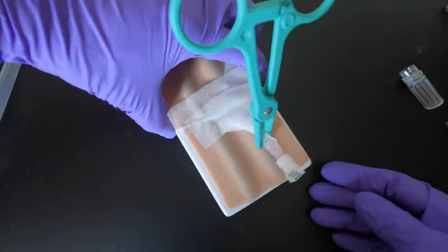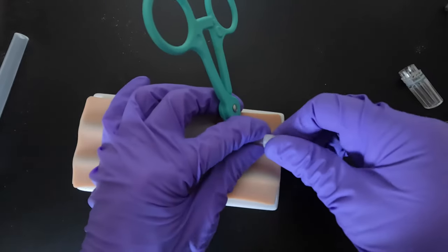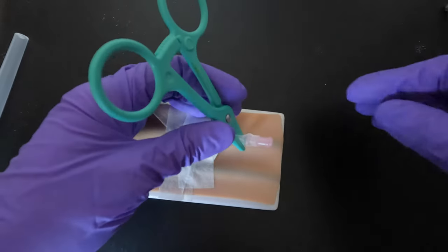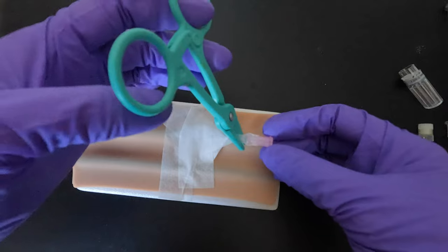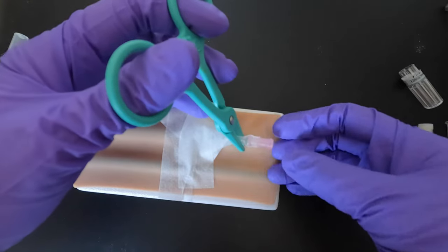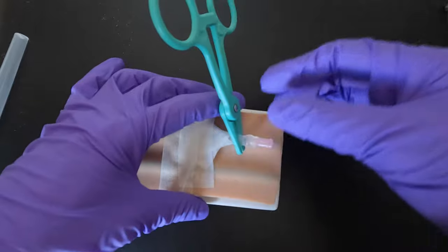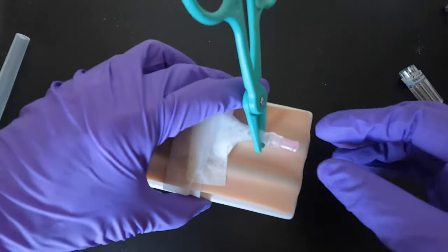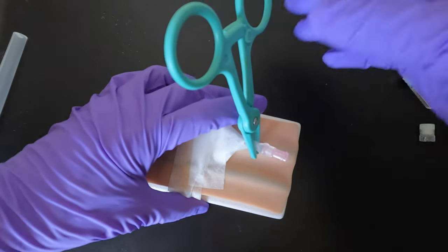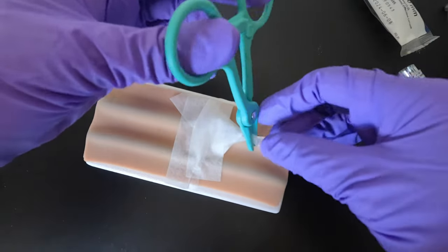Now you can take the cover off. You might want to remove the air first using a syringe, or control it with the clamp. In our unit we don't really use this type — we use the needle with the anti-reflux valve — so I haven't personally used this one with patients.